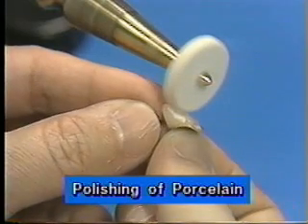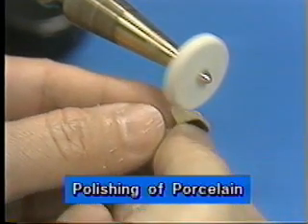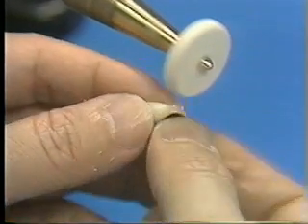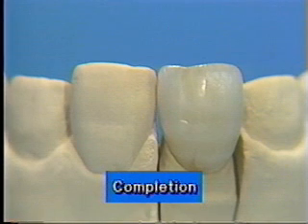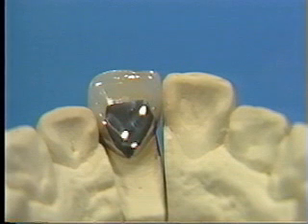Put the pearl surface C onto the felt wheel for lathe grinding. Change pearl surface C with pearl surface F onto the felt wheel for continuous lathe grinding if there is a little luster appearing on the surface. So far, we have completed the porcelain margin ceramo-metal crown using the internal stain technique. The complicated color shades are simulated precisely.